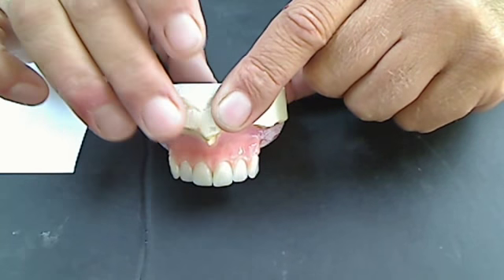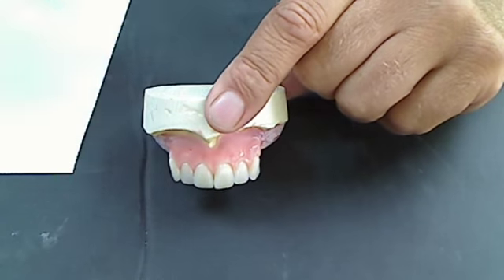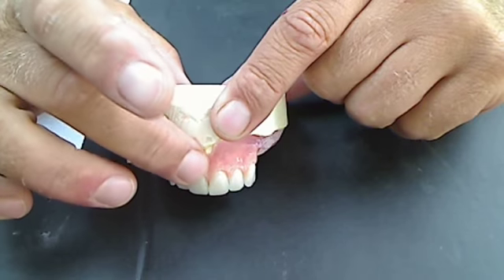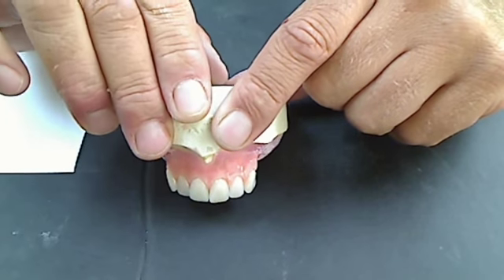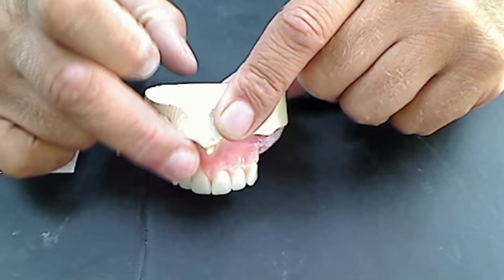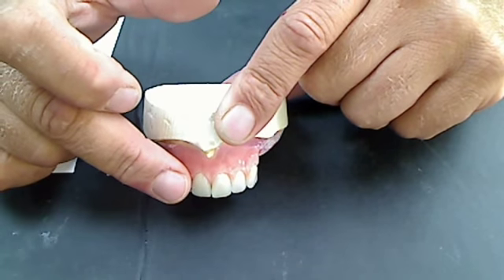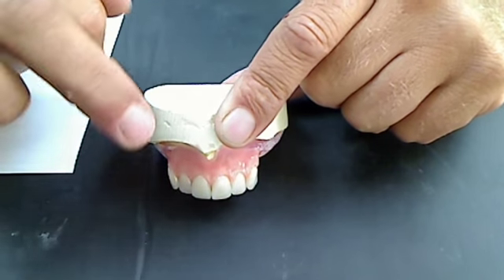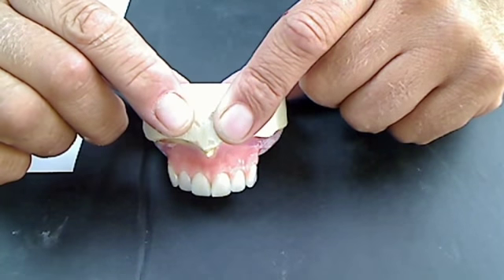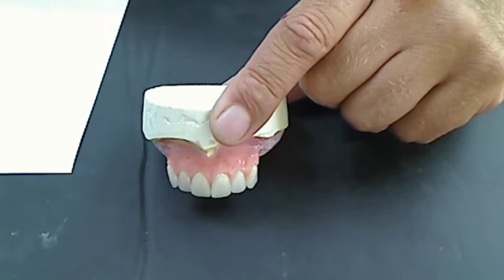One thing to mention: don't let the pre-molded CEJ on your teeth dictate your emergence. Those molded CEJs, I tend to get away from them because whenever they're followed, they make the dentures look trenched. They make the area where tissue meets tooth look trenched because the contour comes in and then goes out. I prefer to have the tissue laying on the surface of the tooth so it projects emergence. Look at your fingernail sometime — it emerges. Keep that mindset when carving your wax and contouring your bases. Stay away from the trenching.